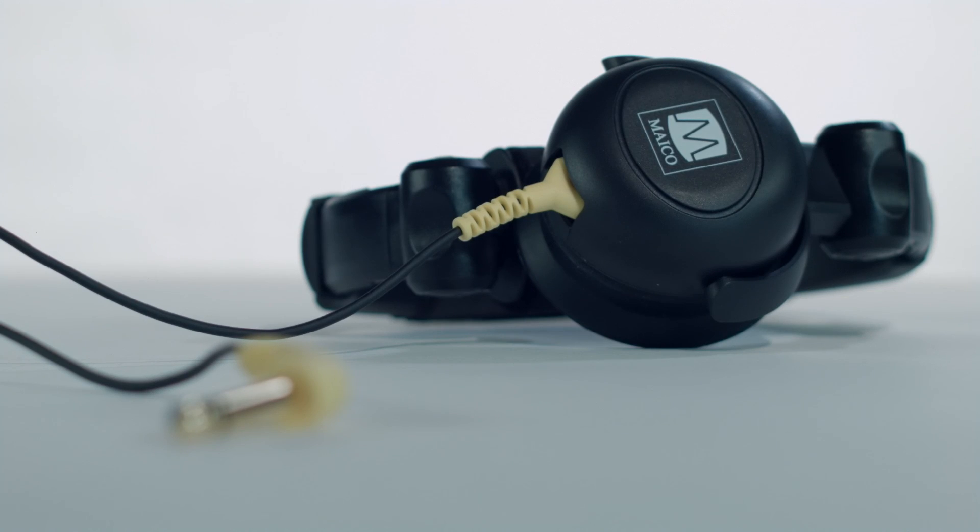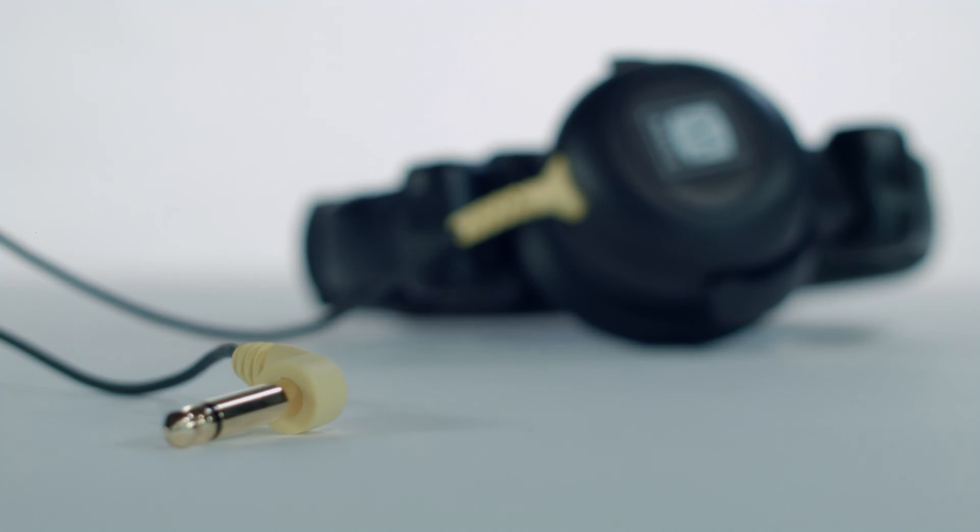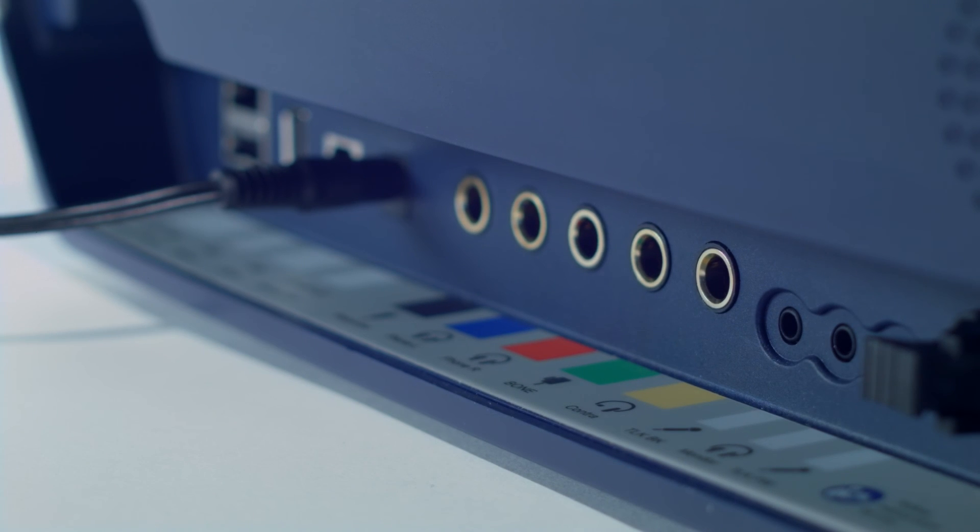A contralateral acoustic reflex measurement can also be performed with a pen probe. As this function is not standard on all devices, verify the contralateral headphone included with your purchase.